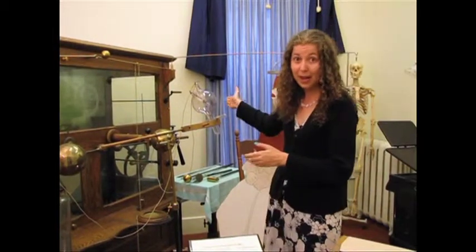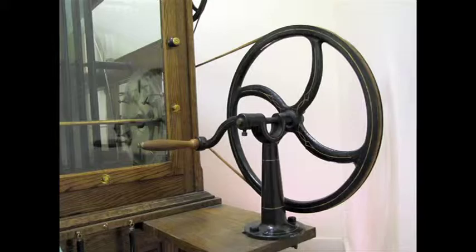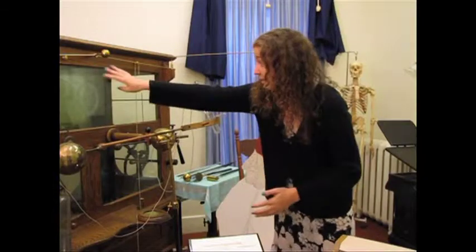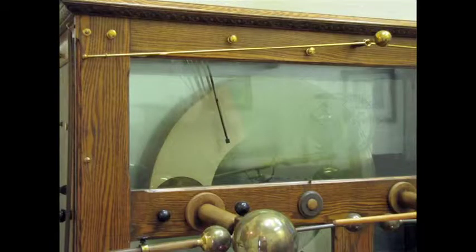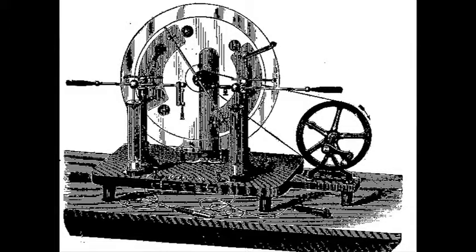How it works is there's a wheel in the back that, let's say, a servant would turn for the doctor. And then these big glass plates in here would turn and create static electricity.